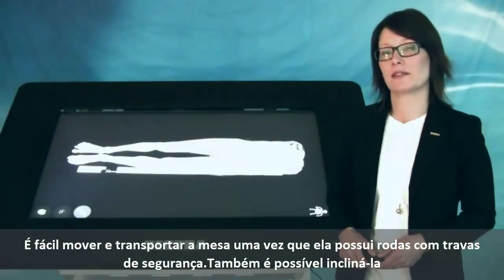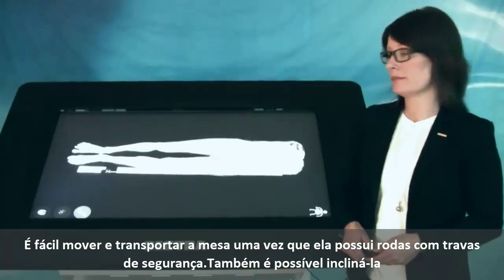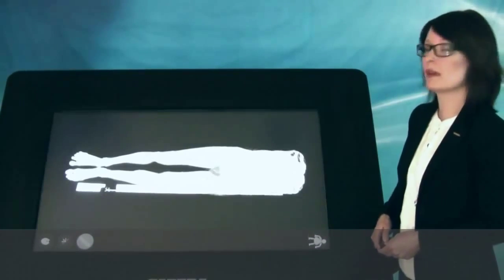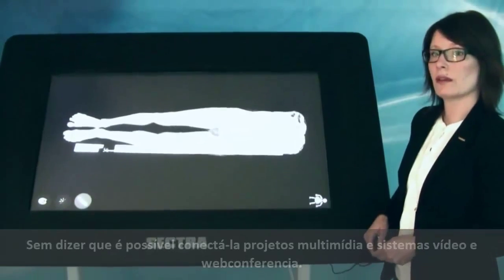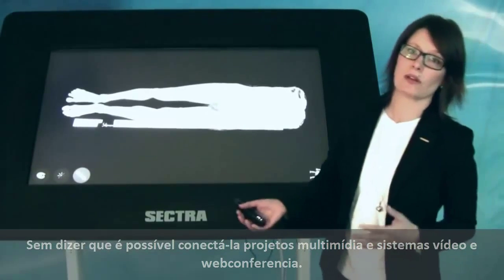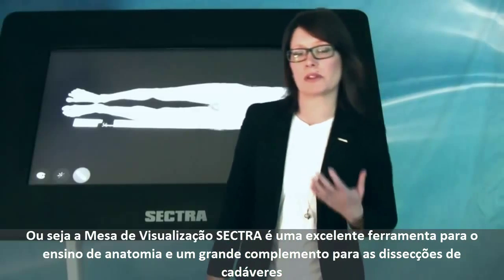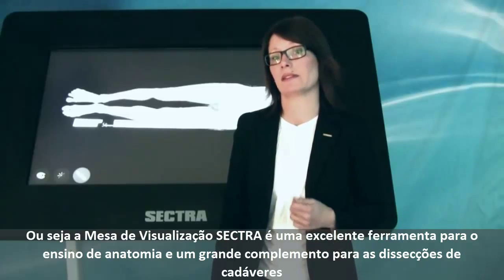The table is easy to move because it's on wheels. And since you can tilt the table and move it up and down like this, and also connect it to a beamer, it's a perfect tool to use in courses and lectures. All in all, the visualization table is an optimal tool for anatomical education and a great complement to cadaver-based dissections.